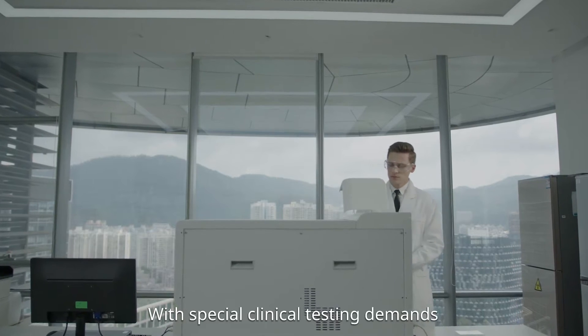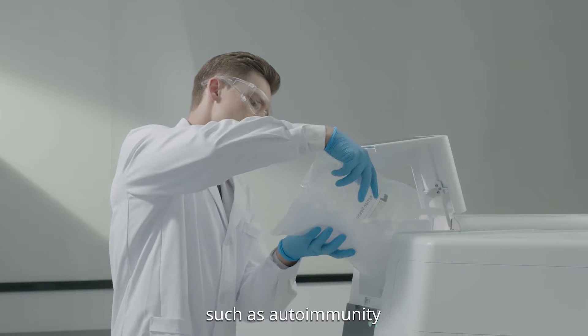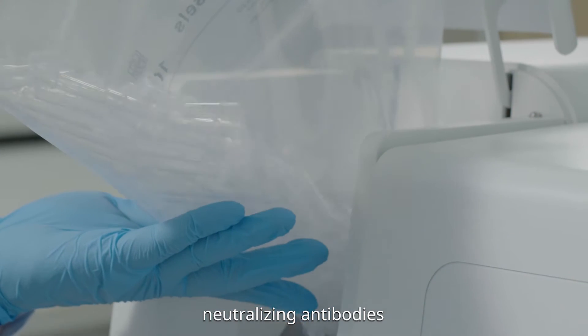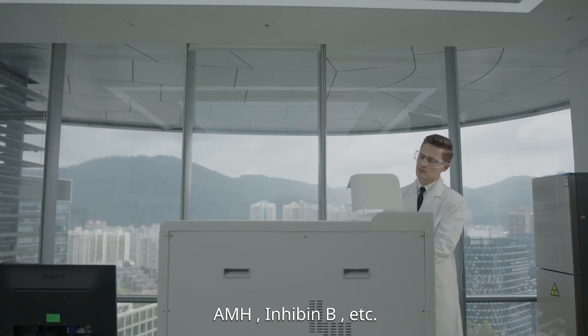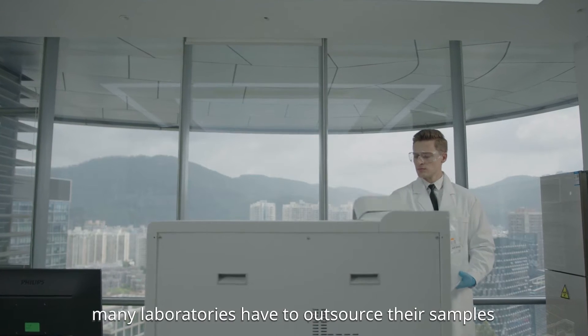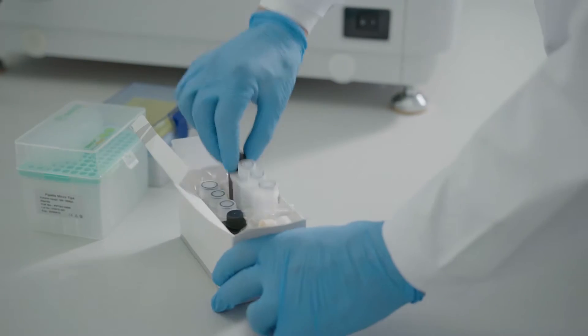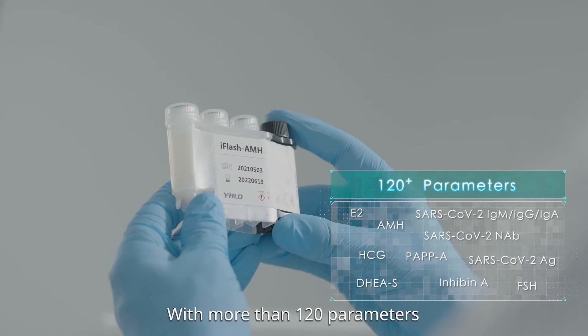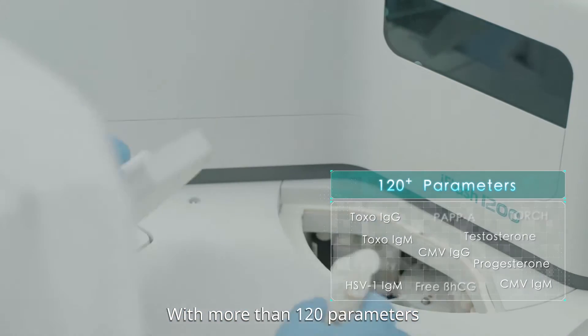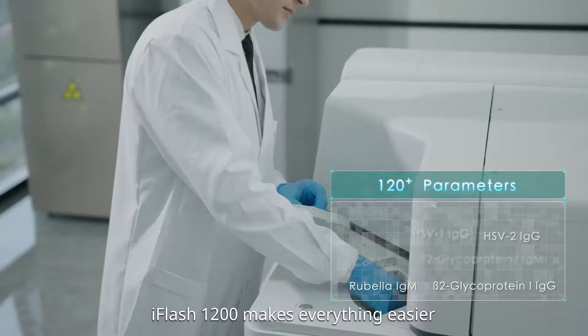With special clinical testing demands such as autoimmunity, neutralizing antibodies, AMH, inhibin, and more, many laboratories have to outsource their samples. With more than 120 parameters, iFlash 1200 makes everything easier.